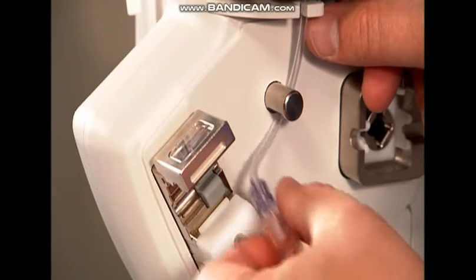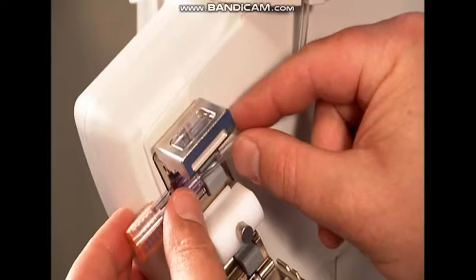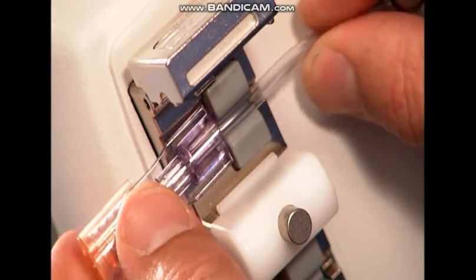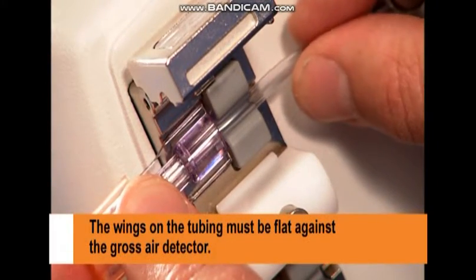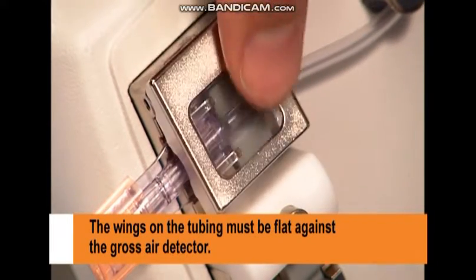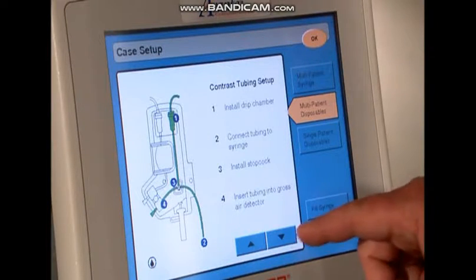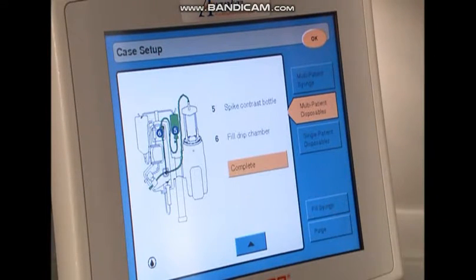Step 3. Route the tubing around the peg. Step 4. Insert the tubing connector into the gross air detector. Make sure that the wings on the tubing connector are flat against the air detector, then close the door. Touch the down arrow to view remaining steps.